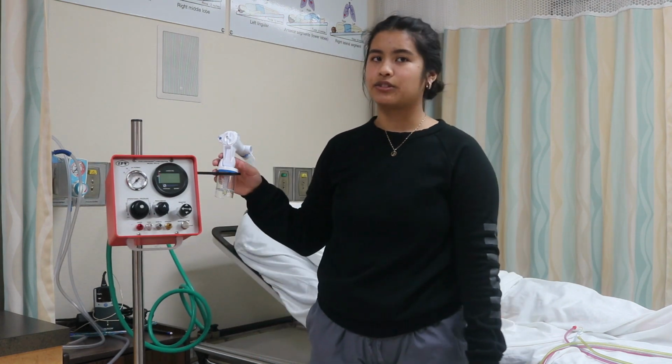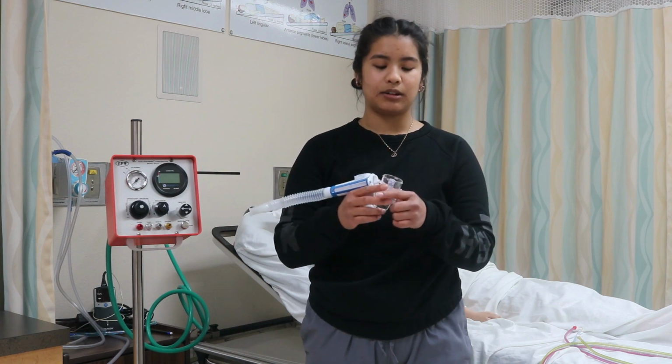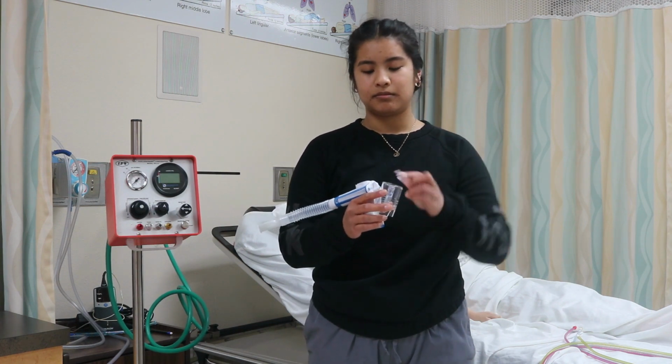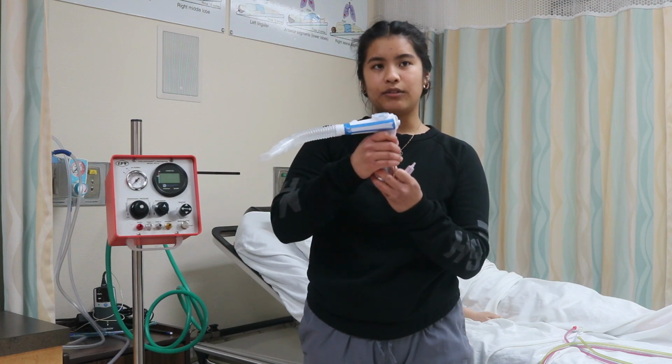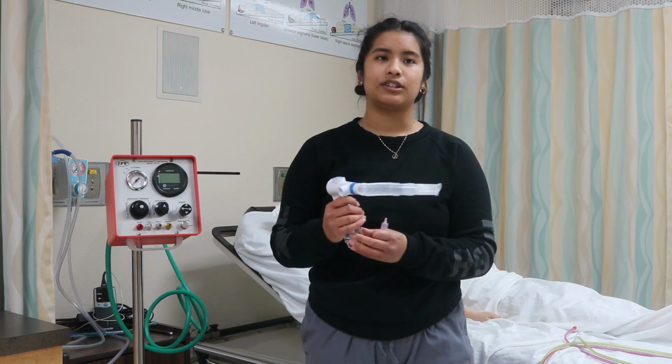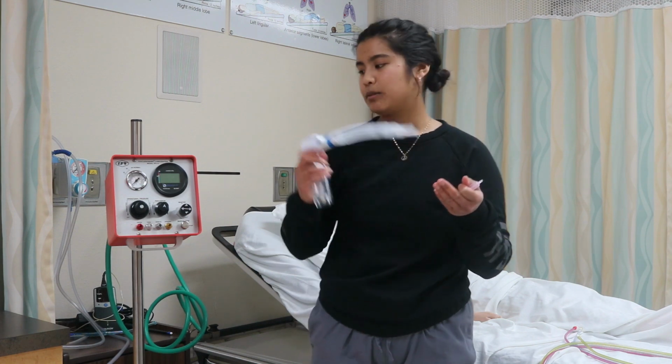So you'll assemble your phasitron. The phasitron has a nebulizer cup on the bottom where you can add your normal saline or prescribed medication. On the top is where you can attach either a mask, mouthpiece, or, invasively, in line with a ventilator circuit during continuous mechanical ventilation. Today we have it attached to a mouthpiece.